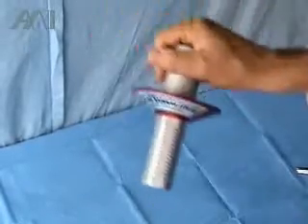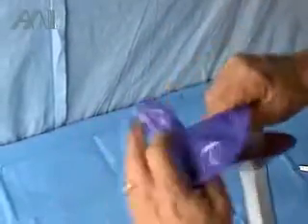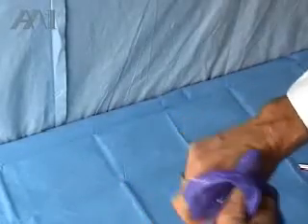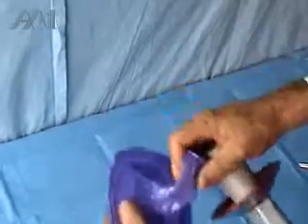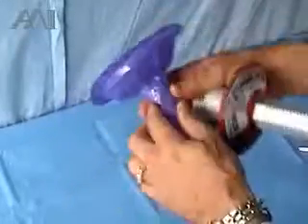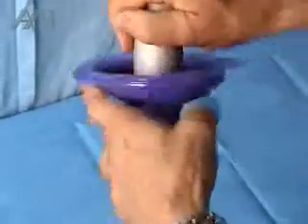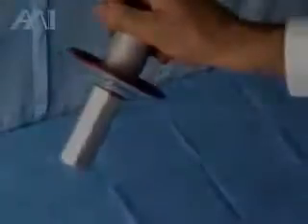Our simple, straightforward design of a light handle cover has basic features: a flattened area to give you a lot of force to apply on the light, create vacuum and push it onto the grip, burp it, and use it. At the end of the procedure, you remove it and you are done. Thank you very much.